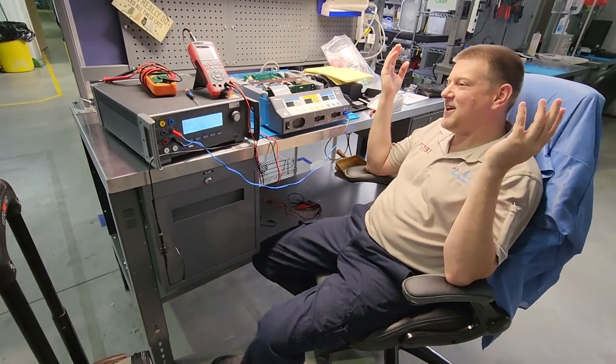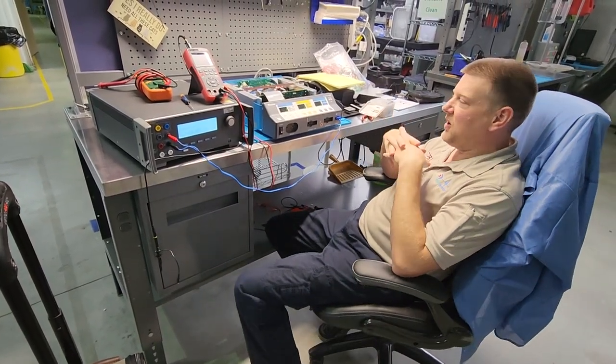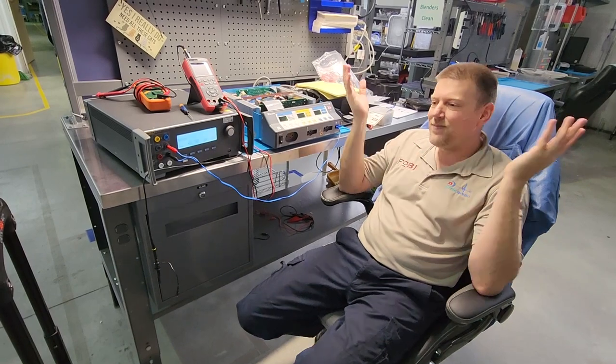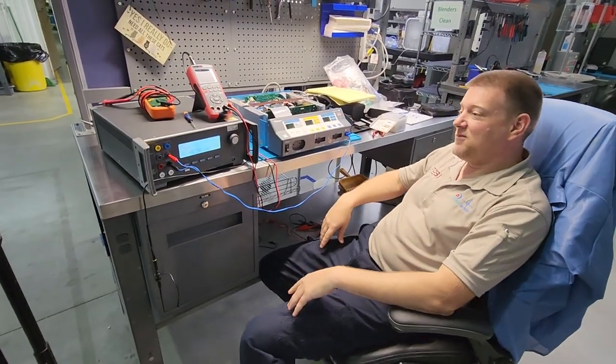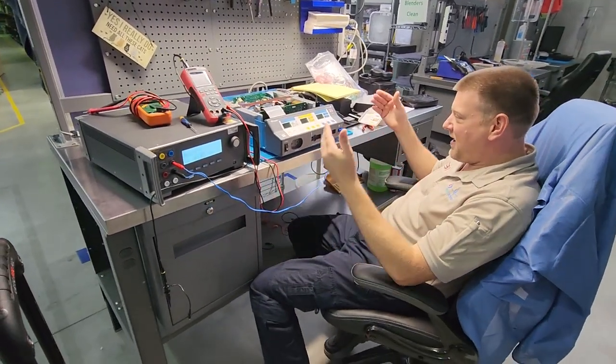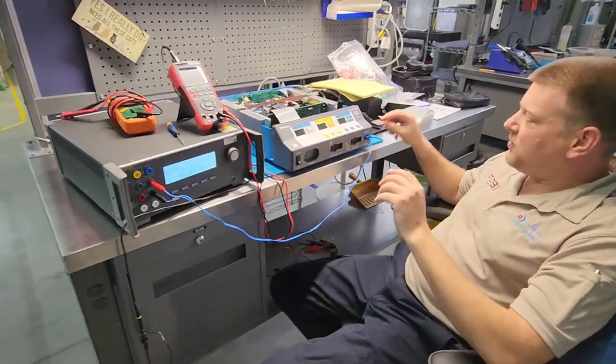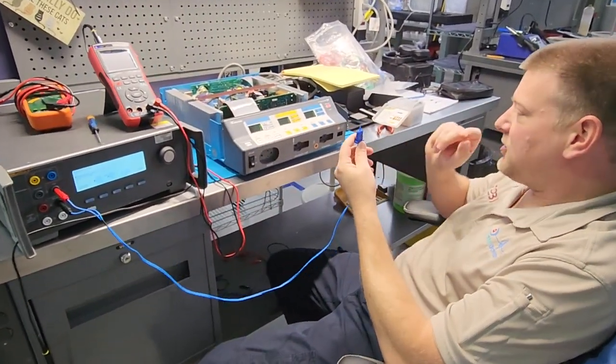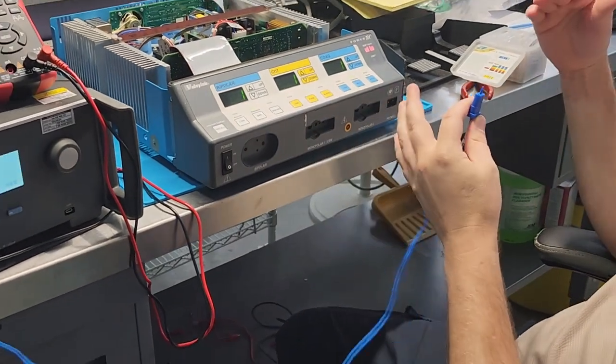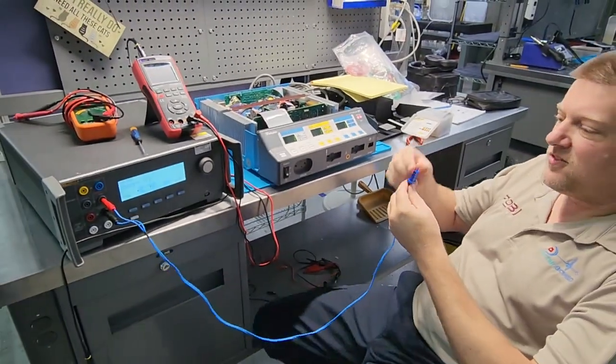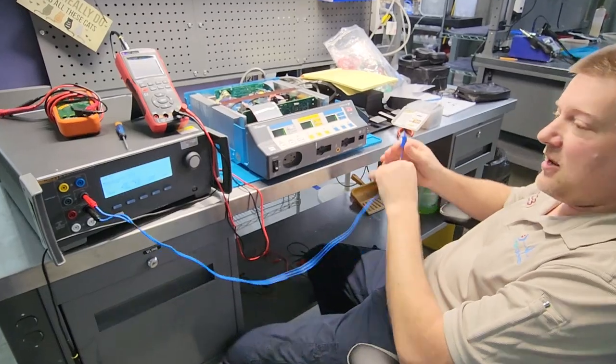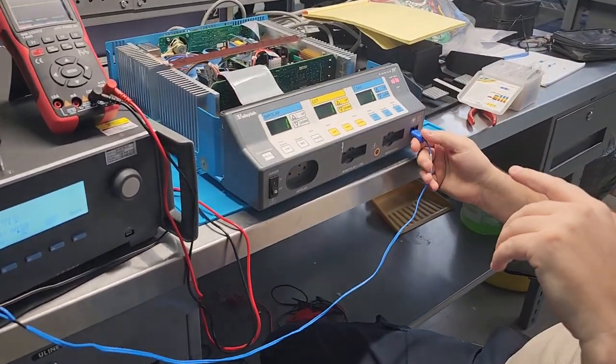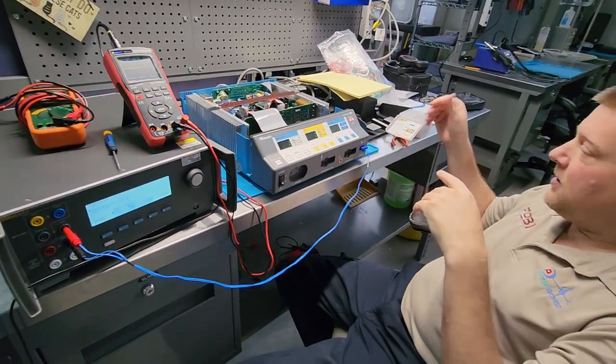It kind of says that in the manual, although it really wants you to get close to 82 kilohertz. I didn't go by that. So anyway, after wrestling with it, I finally got it. So guys, if you're using a dual electrode, you're looking for 10 ohms to 135 ohms. If you're looking for a single electrode, which doesn't have the dinglehopper, then it's looking for zero to nine or 10 ohms, I believe.